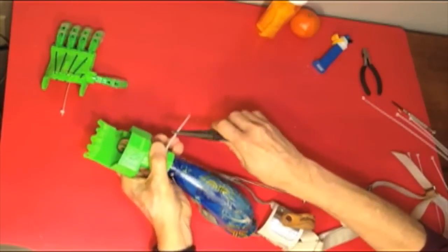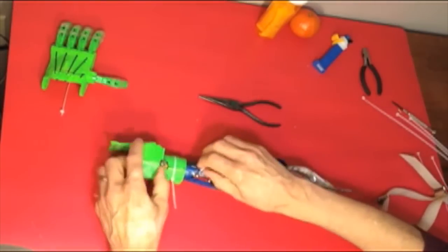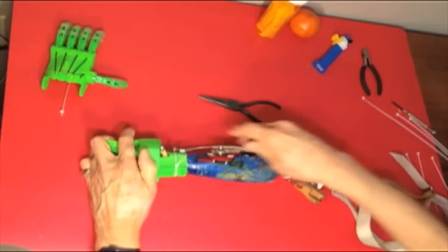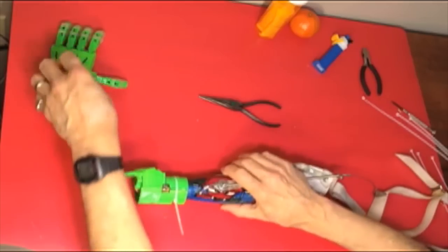With this adapter, the Raptor hand can be attached to Wilhay's existing prosthesis using zip ties. The final design will just snap together.